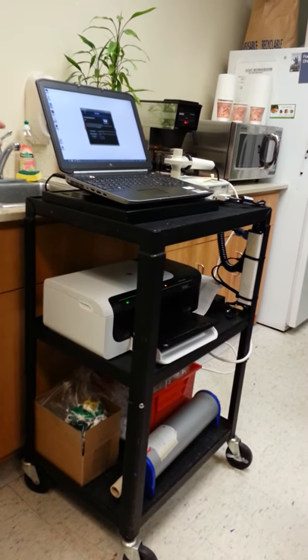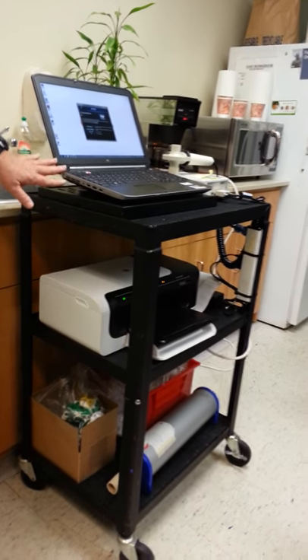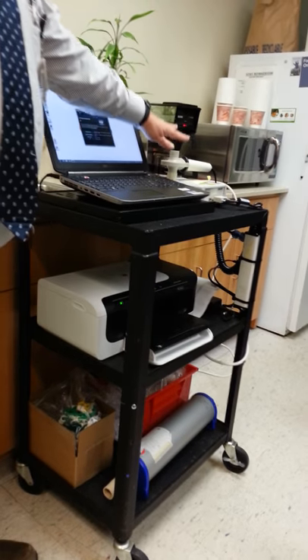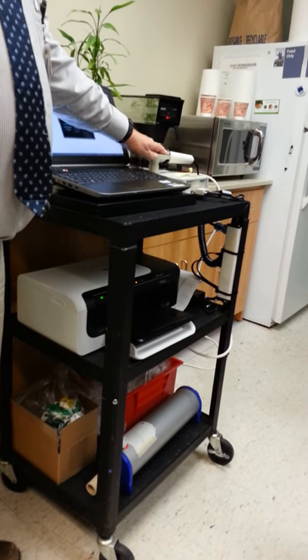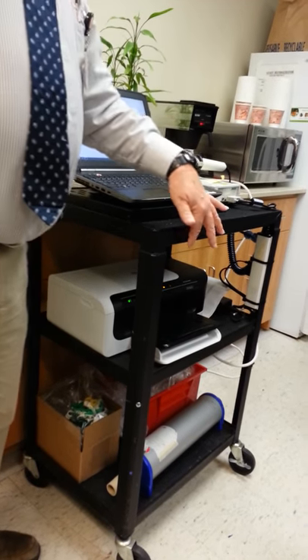Three major components, obviously the computer, the Pneumatac itself, and the printer.